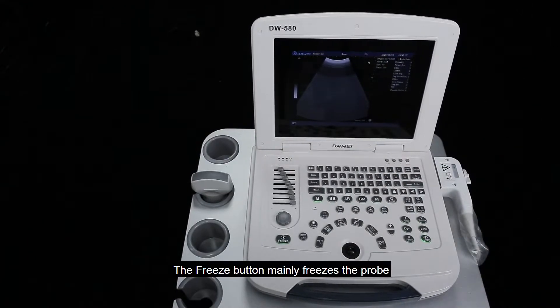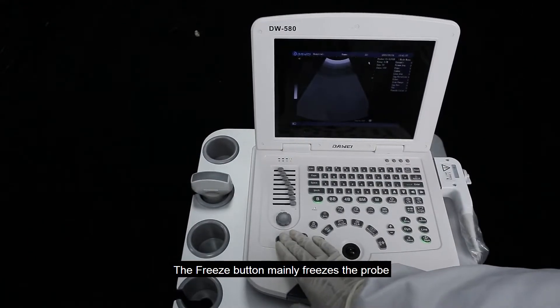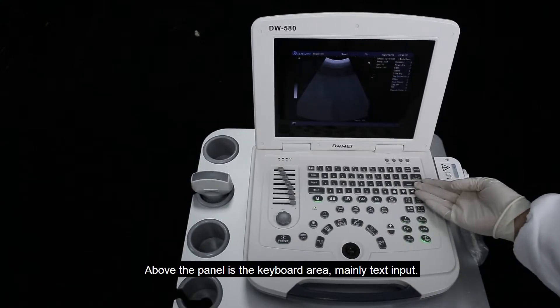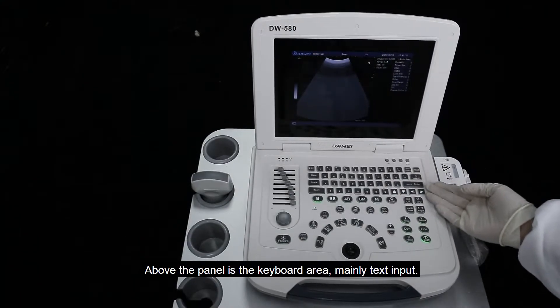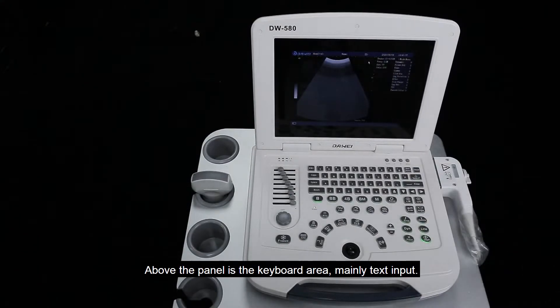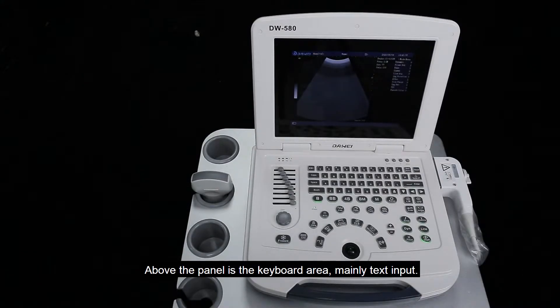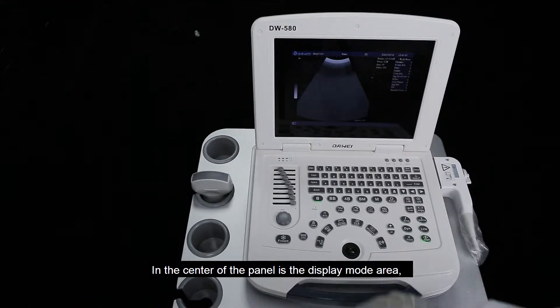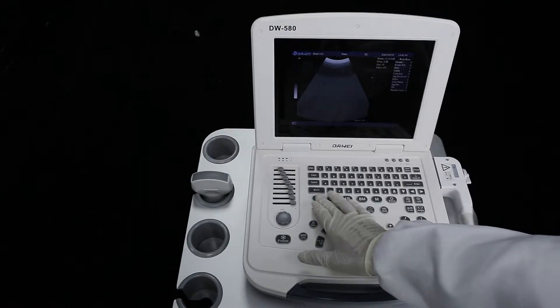The freeze button mainly freezes the probe. Above the panel is the keyboard area, mainly for text input. In the center of the panel is the display mode area.